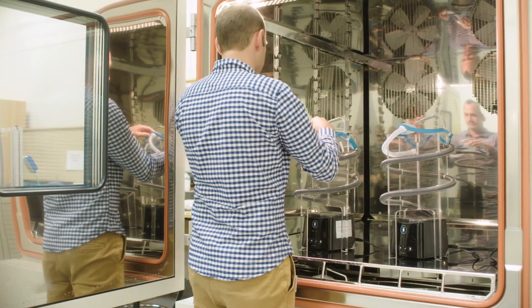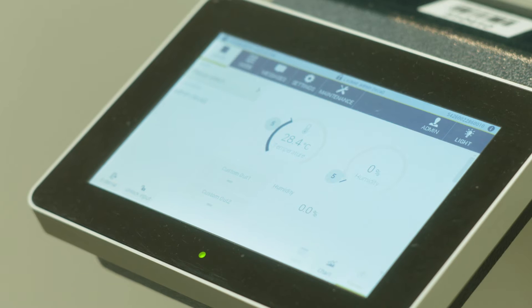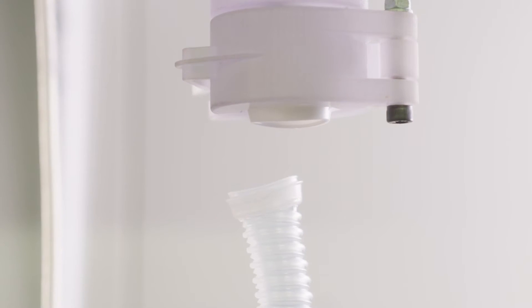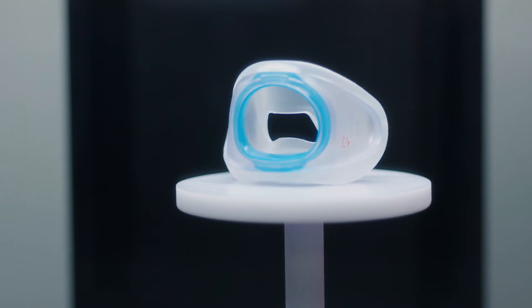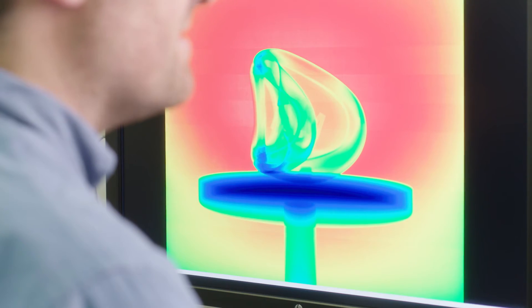The testing for Evora is really around proving the device works. Some of the really cool testing we've got here is the simulated life testing — we actually put them through their paces against what patients will be doing at home. Instron tests, so force testing. We do a lot of sound emission testing to prove that the product is a really desirable device to sleep with and that it's safe and effective to go on to patients.